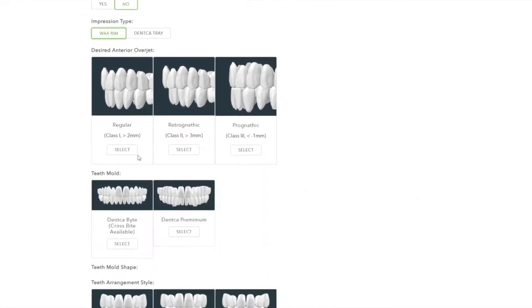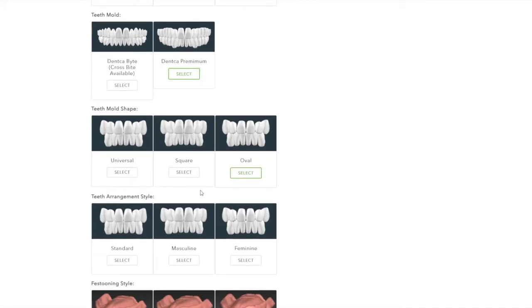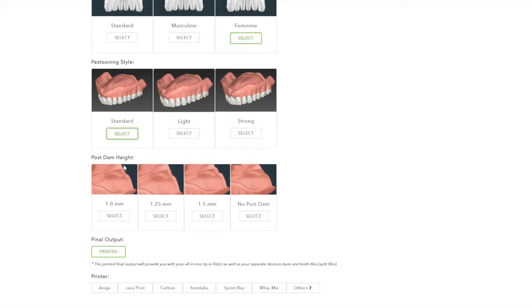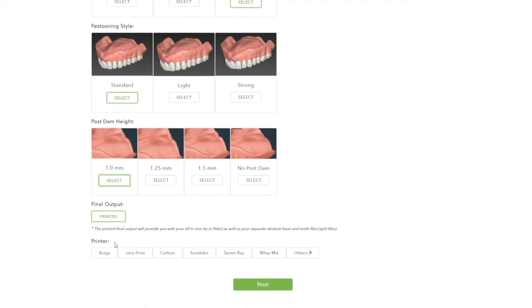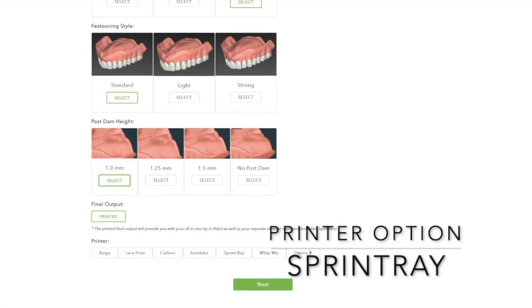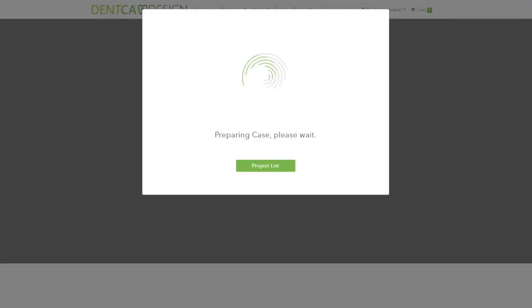During this stage, you may select various options in teeth arrangement, shape, and height of the post dam and festooning style. Please note that the no post dam option should only be used during try-in adjustments, but not as an initial selection for new cases. Once all teeth and gum selections have been made, please select your printer from one of the below options. If the printer is not on the list, you may select others and decide whether you would like regular margins for 0.3 mm sockets or thin margins for 0.2 mm sockets. When all the information is selected, click Next to proceed with matching.